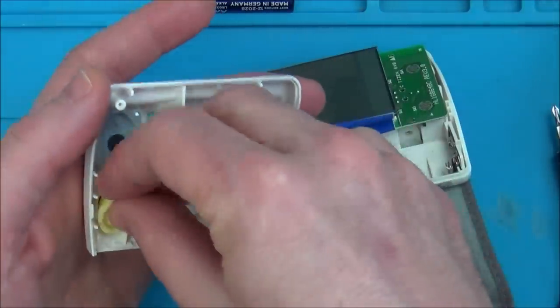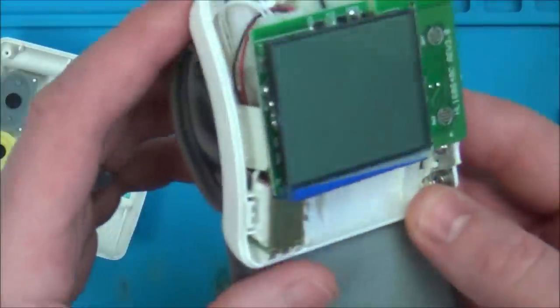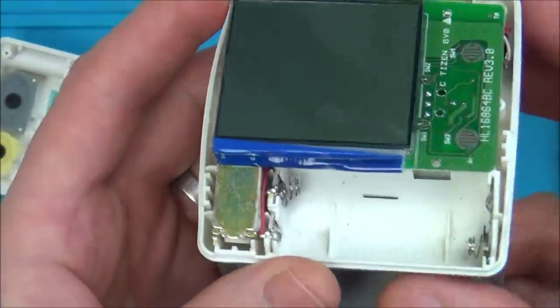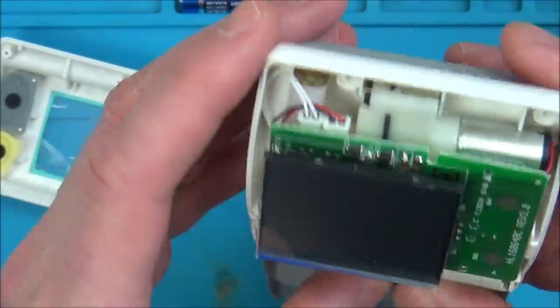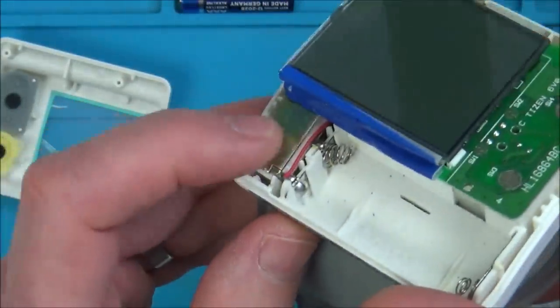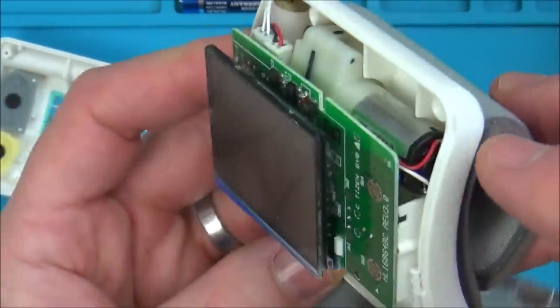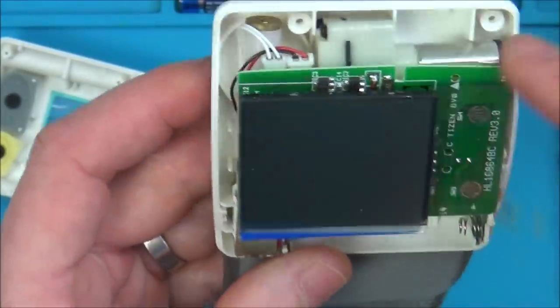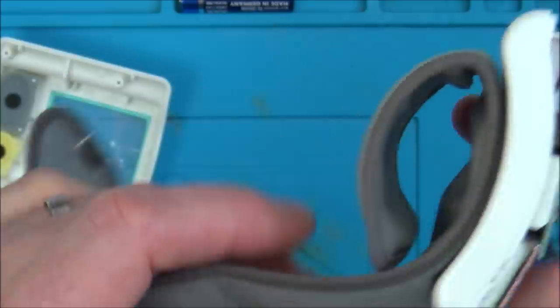So that's just a button there. Looks like we've got a little motor here. This is going to be interesting to see how the inside of this works. Oh, and another motor here as well - well, maybe this isn't a motor this side. That's definitely a motor that side. I wish it was like a mechanical problem rather than the fact that it's leaking air.